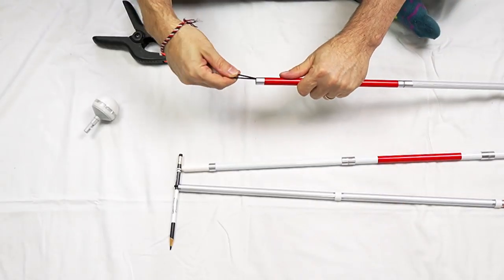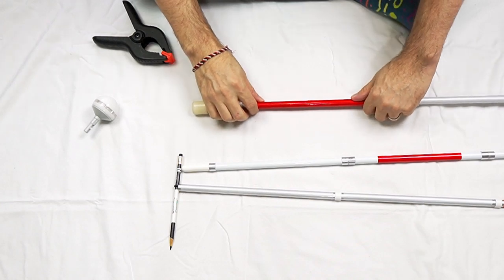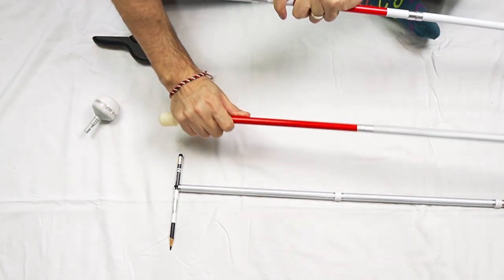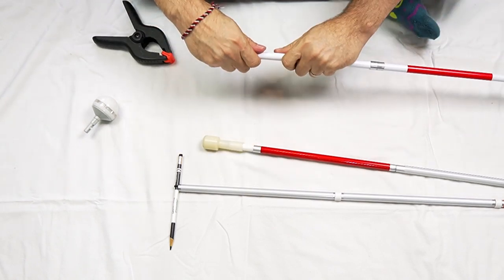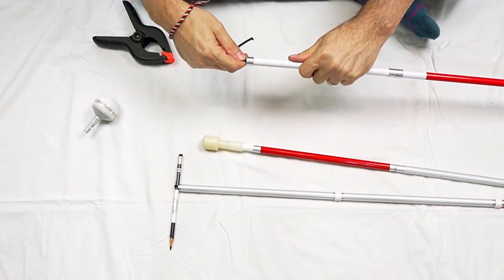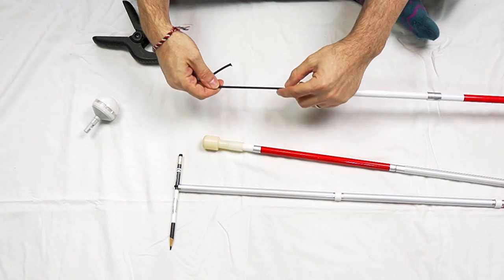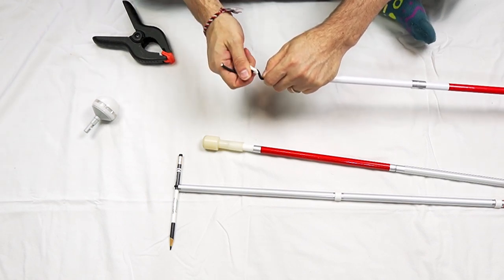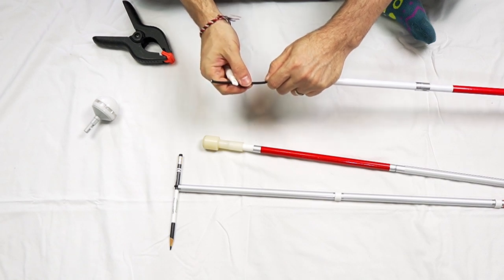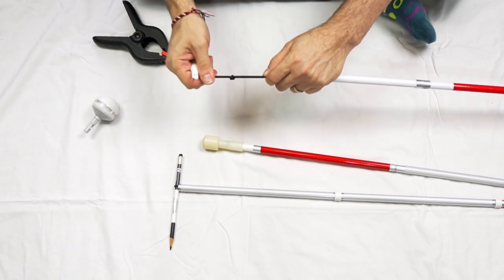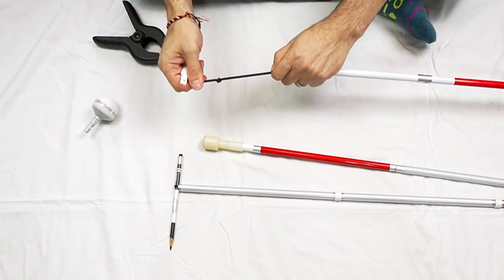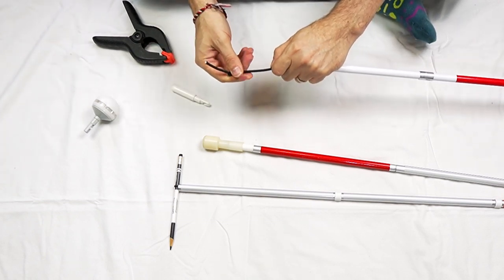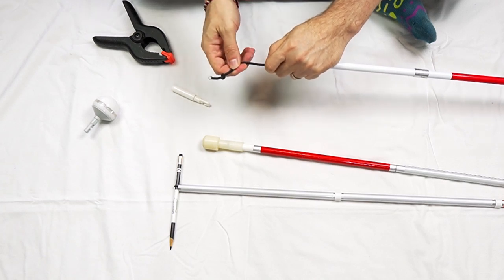All right. So let's check out the next one. This is also a loop. So let's skip that one. Let's go to the pencil tip here. Ah, here we go. So this is a single cord. There's a knot at the bottom that the hook is hooked around, not letting it go back down.